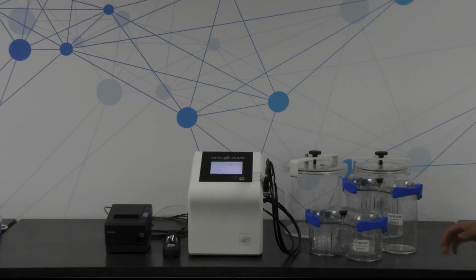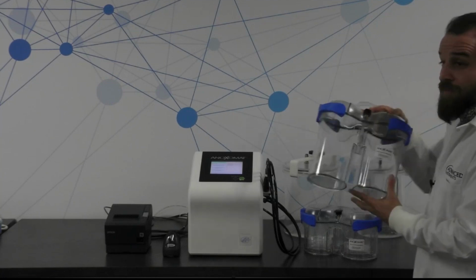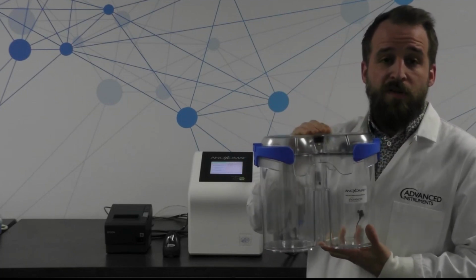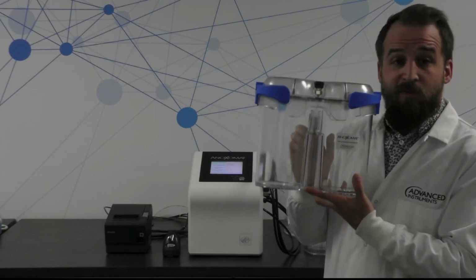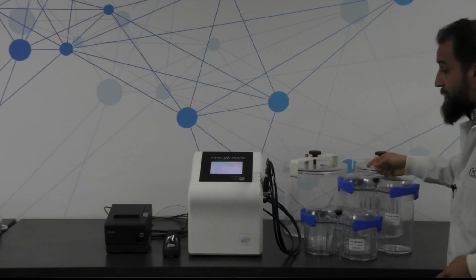So another thing we're really excited about with this instrument are these cool ergonomic jars, which are our newest line of jars. So they look like this. This is our largest one. It holds 2 towers of 12 plates. So this will actually hold 24 plates. It has a handy little handle, and it actually has a place right in the middle here where it's easy to drop in your palladium catalyst or your Pallinox catalyst.